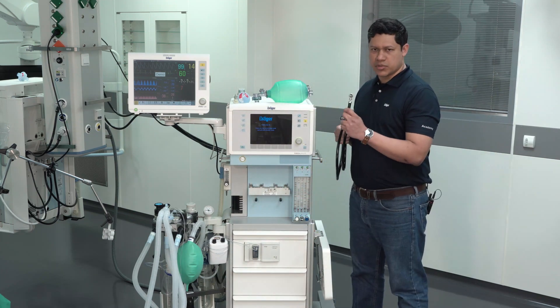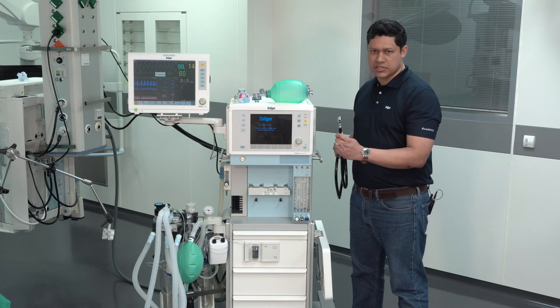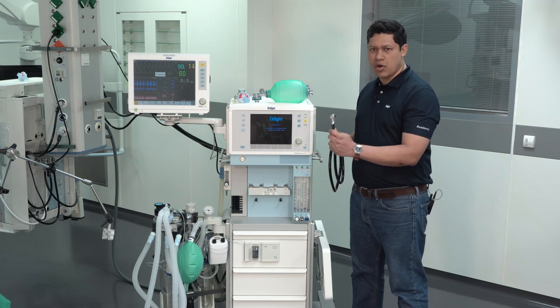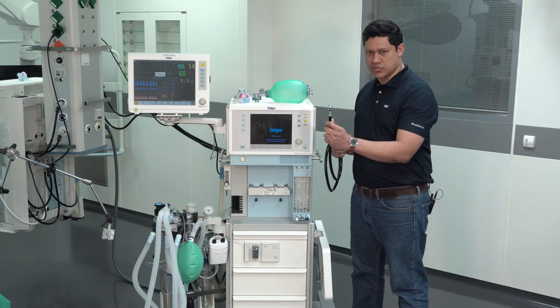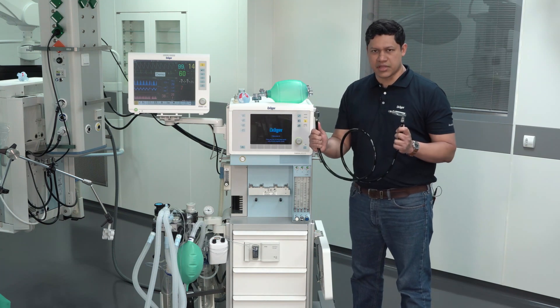Make sure nitrous oxide is not supplied to the anesthesia device. The recommendation is to take the hose out. To do so, please disconnect from the source and then from the anesthesia device.